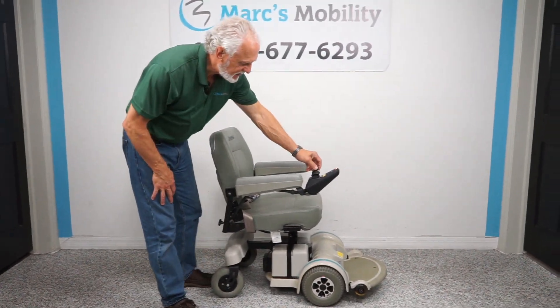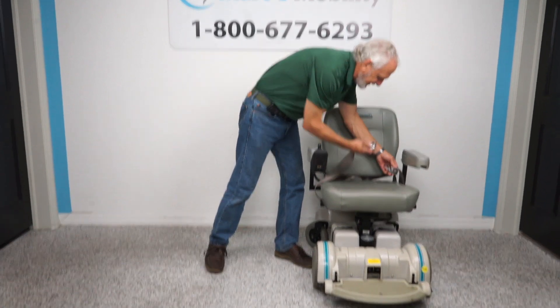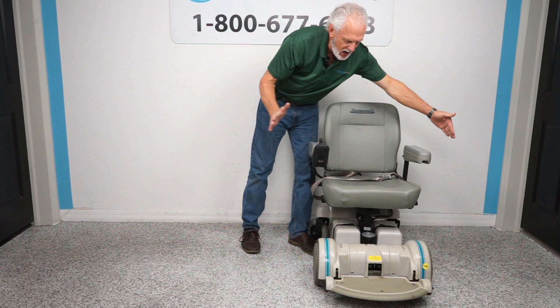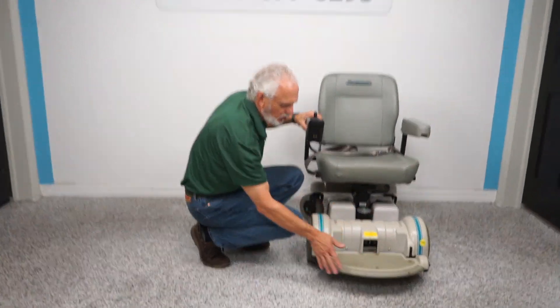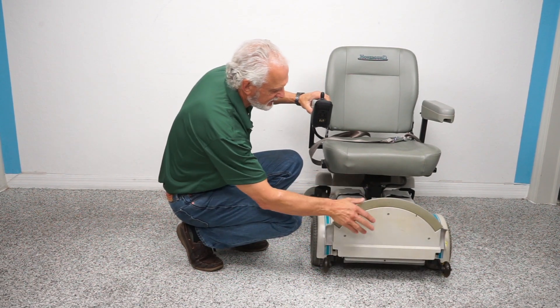This is a large seat — about 21 inches wide by 18 inches deep. It has a safety belt, flip-up arms on both sides, and the arms can go out if you need more width. The Hover Around corporation is famous for their rounded foot plate, so you can go around corners without hitting too many things. It also flips up when you exit the chair.